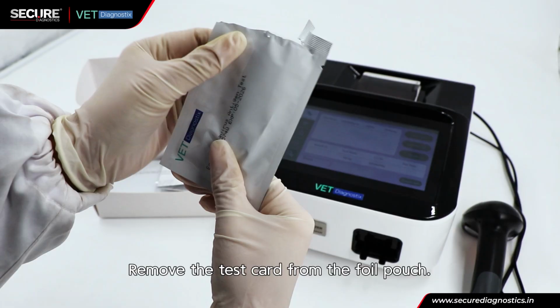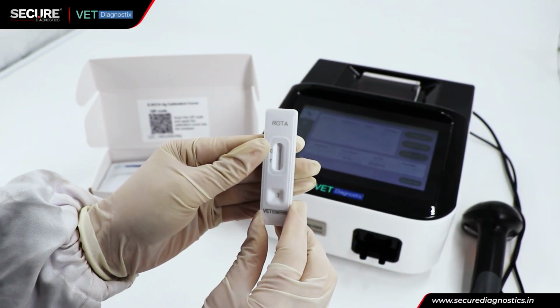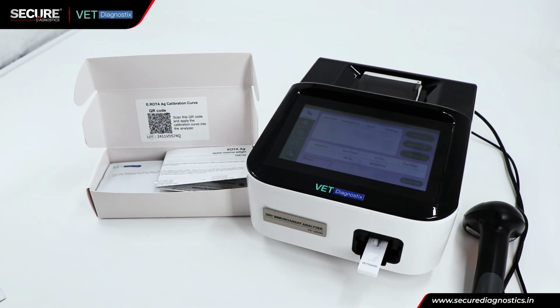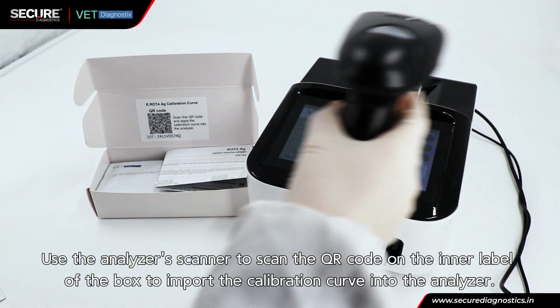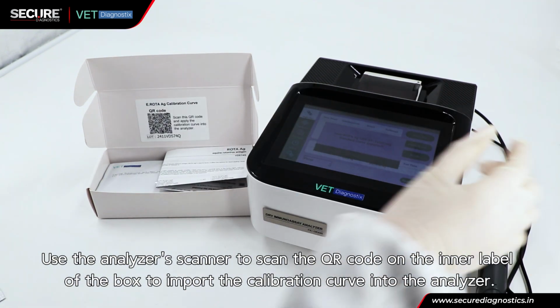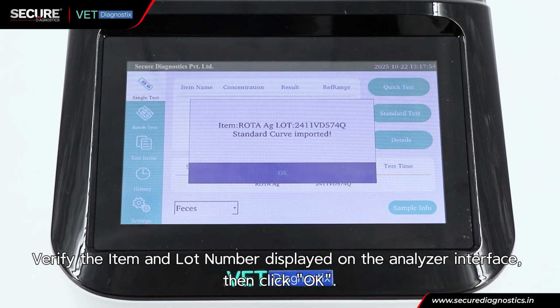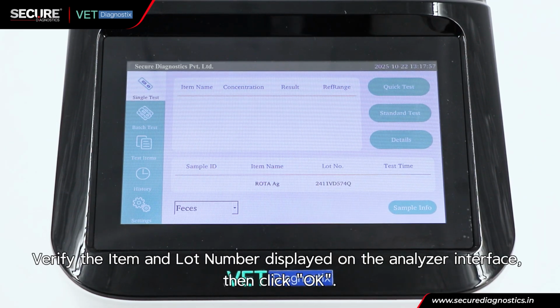Remove the test card from the foil pouch. Insert the card into the test card slot of the analyzer. Use the analyzer scanner to scan the QR code on the inner label of the box to import the calibration curve into the analyzer. Verify the item and lot number displayed on the analyzer interface. Then click OK.